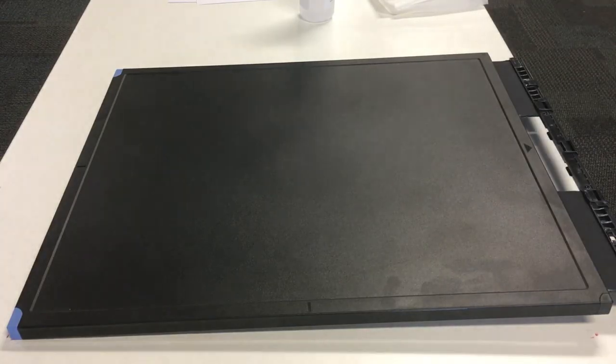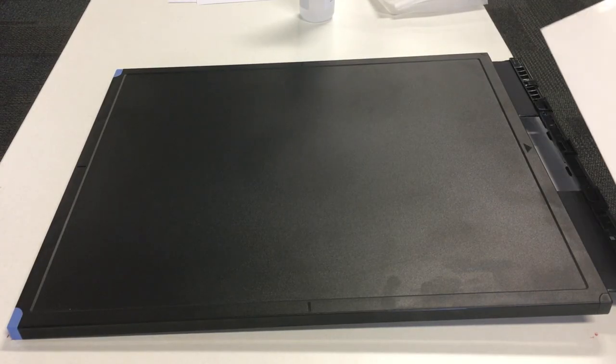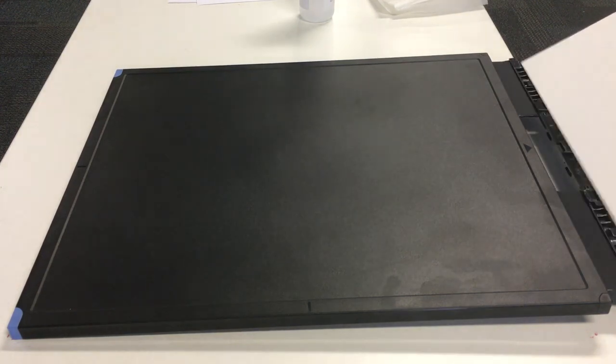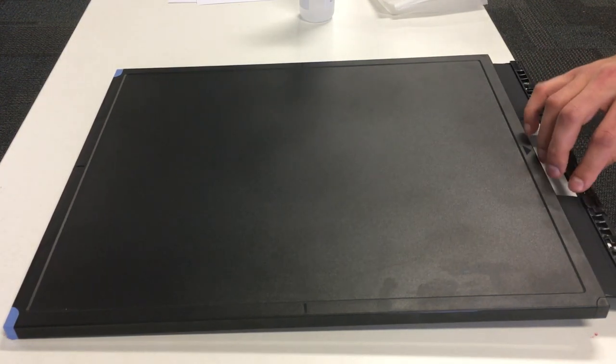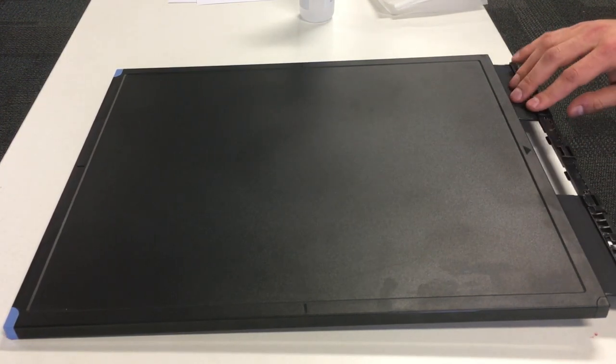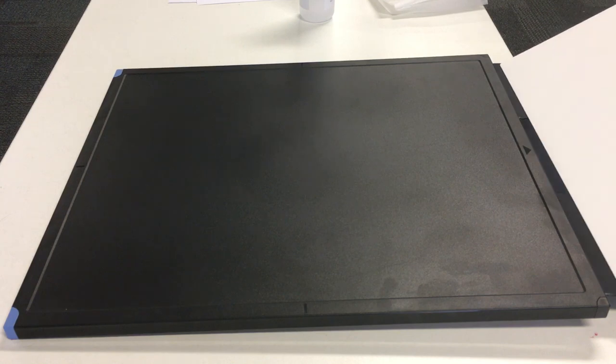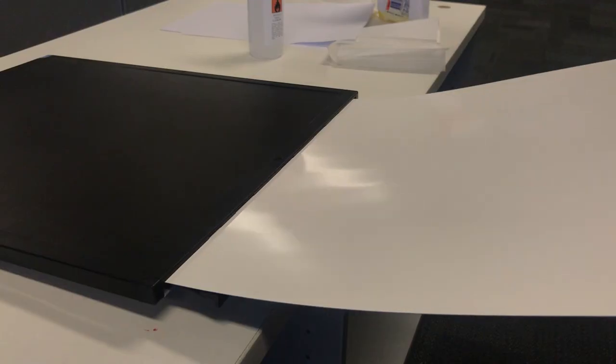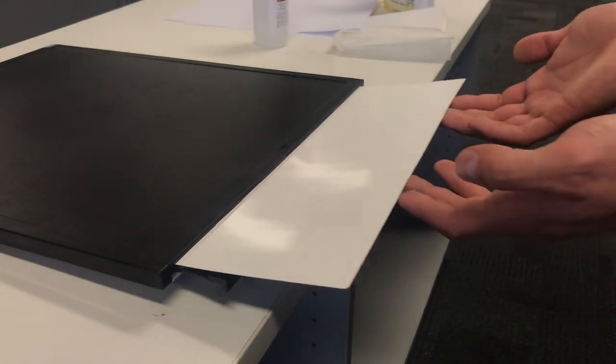Now we're going to enter the plate back in. Just like that. So it's still open. We just feed this in, just like that.